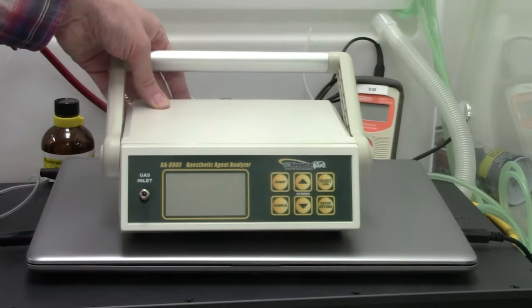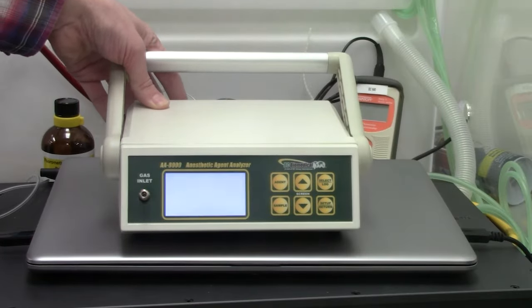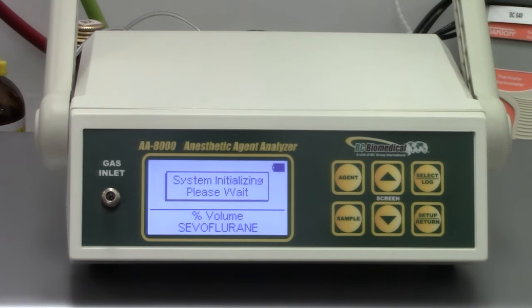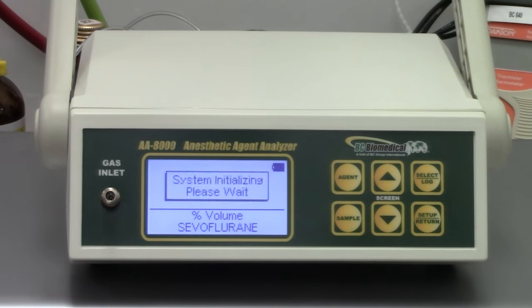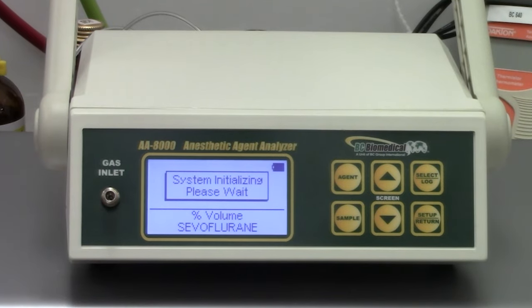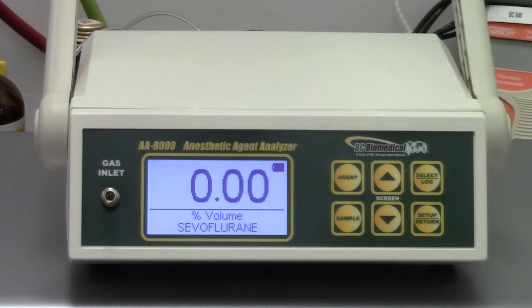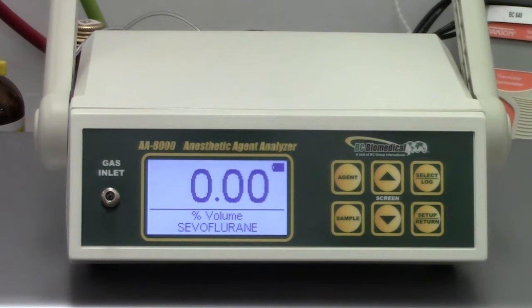Begin by turning on the AA-8000. When turned on, the Analyzer will take about 35 to 45 seconds to initialize the pump. When finished, the primary screen will appear showing a reading, battery indicator, and the agent being measured.